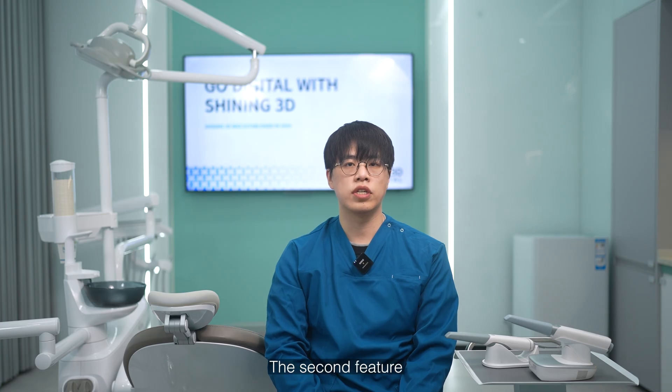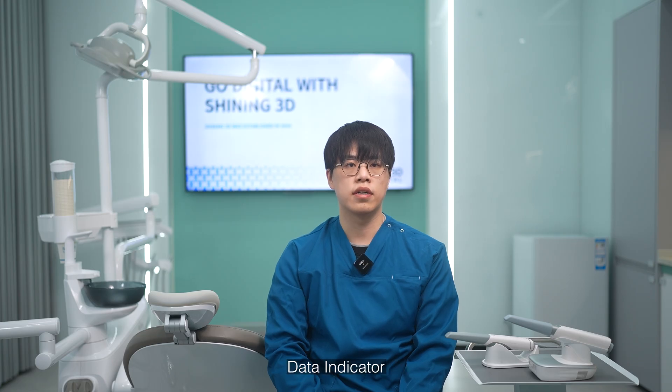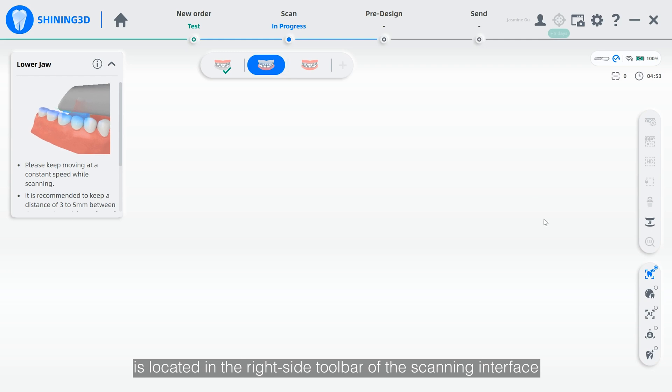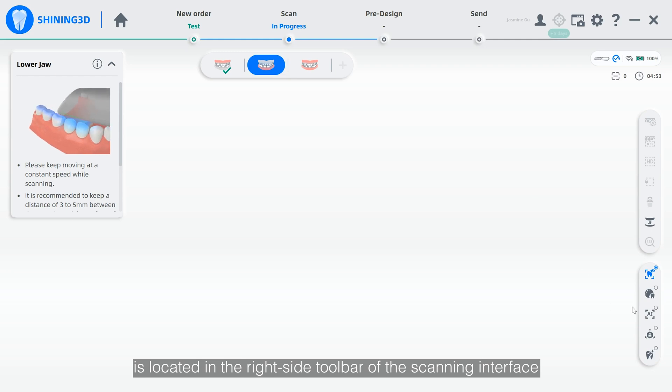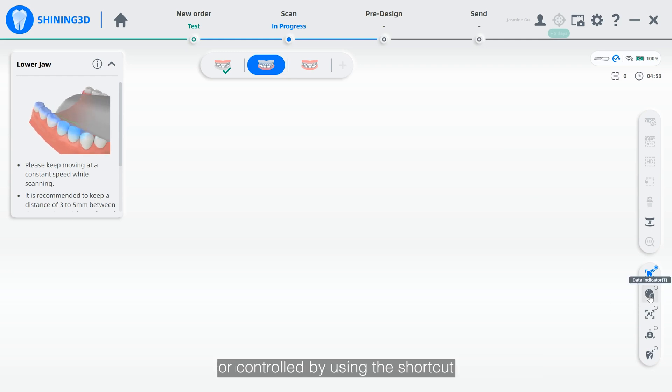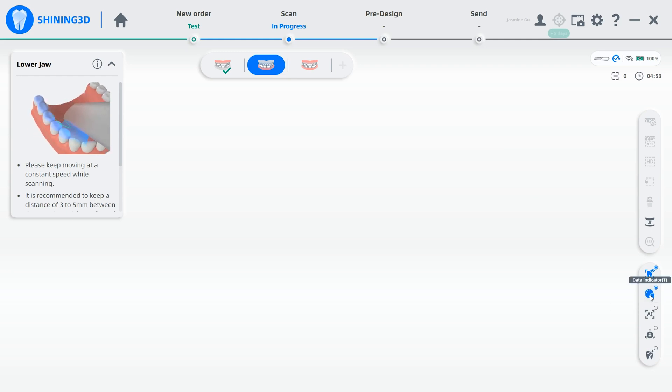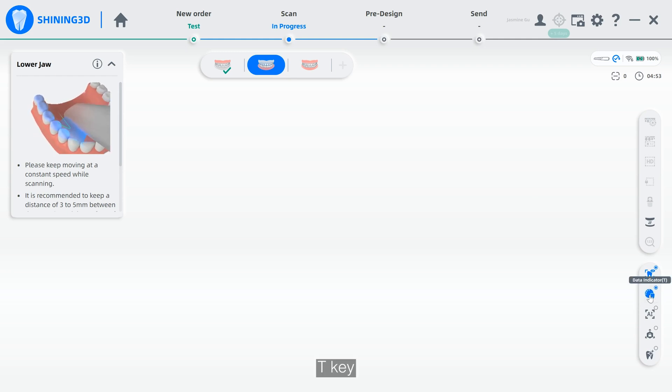The second feature, data indicator, is located in the right side toolbar of the scanning interface, or controlled by using the shortcut key, the T key.